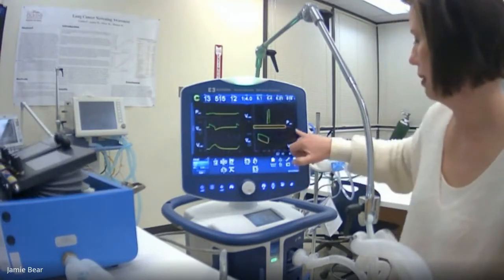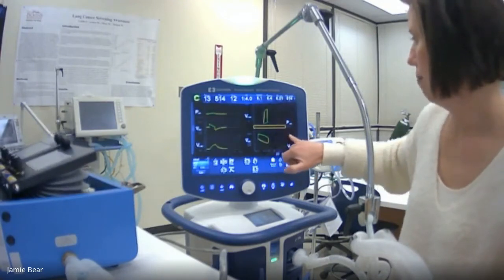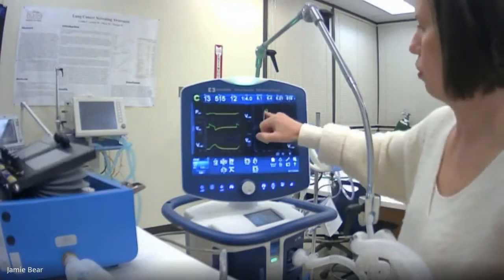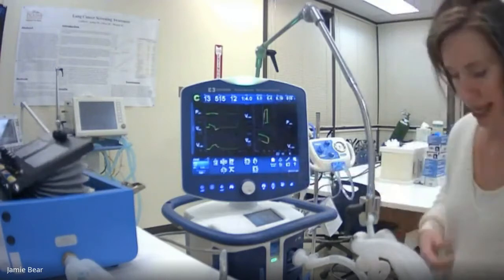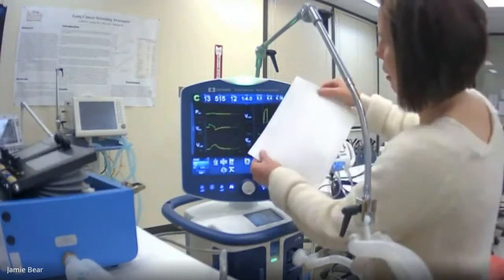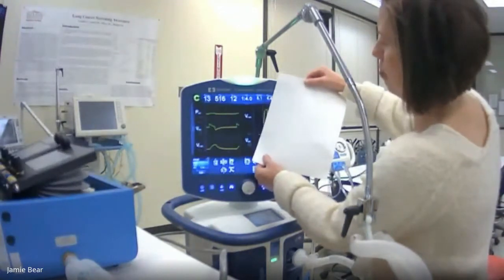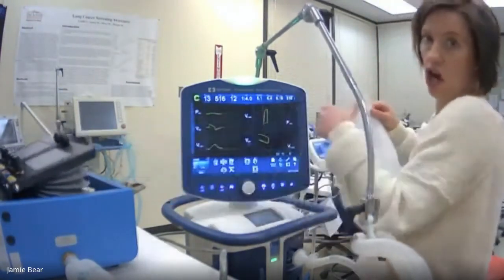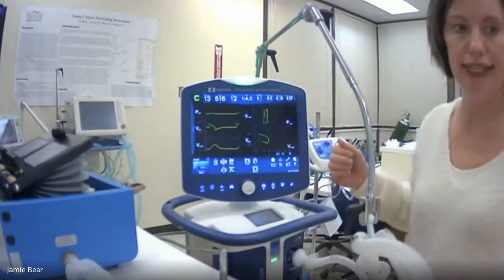There we go. That might help us see this just a little bit better. And if you took the slope here, and the slope is the rise over the run. So if you drew a line between the beginning and the end, if you just look at that slope or the shape of that, these lungs right here are very compliant. Okay, they're very compliant.